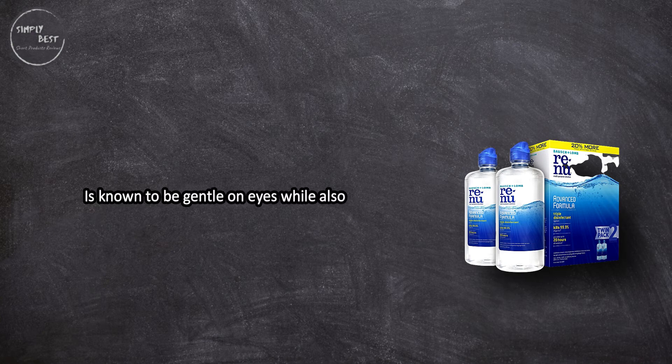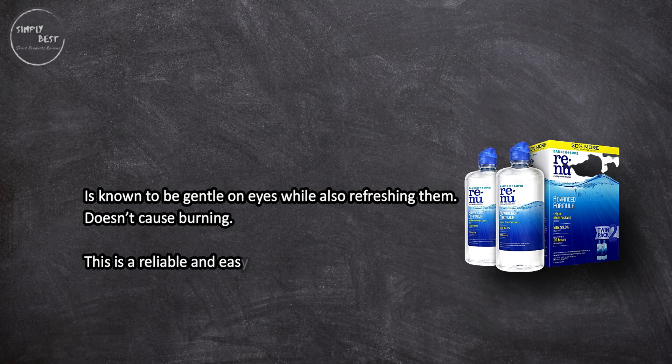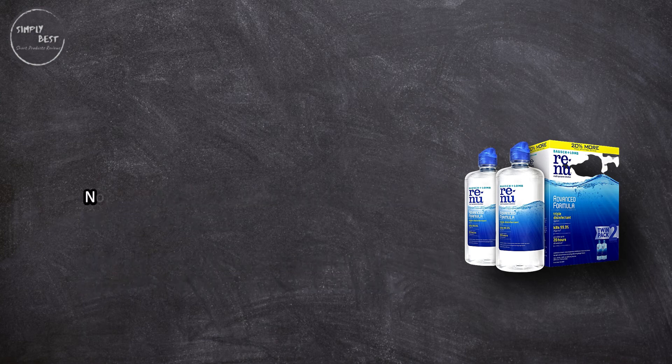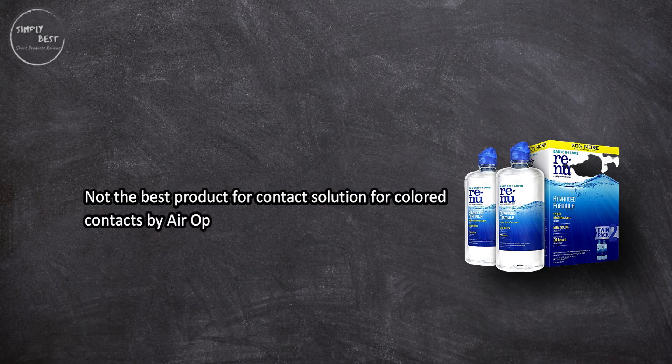Is known to be gentle on eyes while also refreshing them and doesn't cause burning. This is a reliable and easy to use contact solution to keep eyes moistened and ensure comfort all day long. Not the best product for colored contacts by Air Optix.